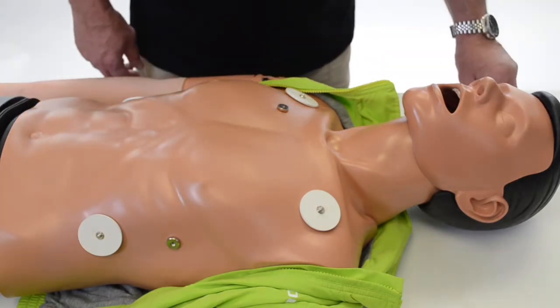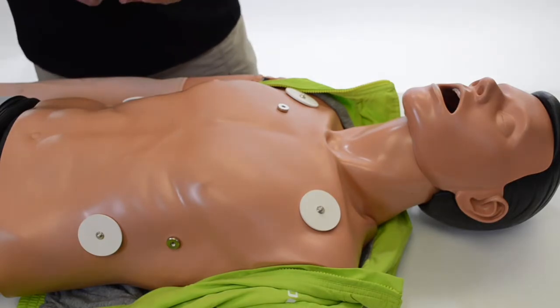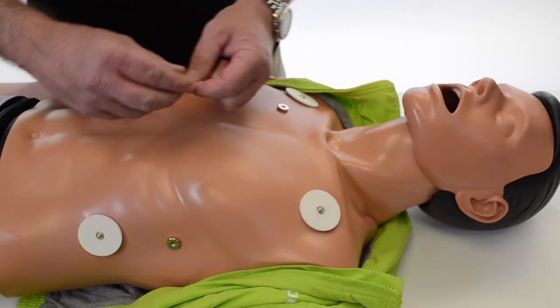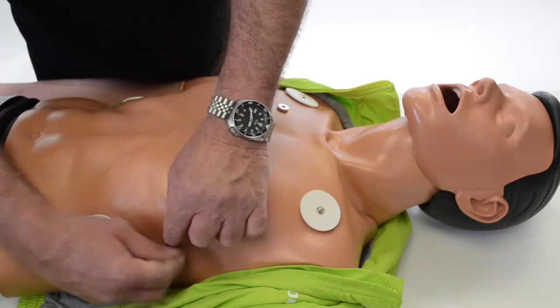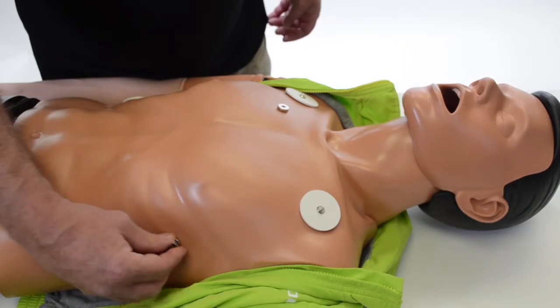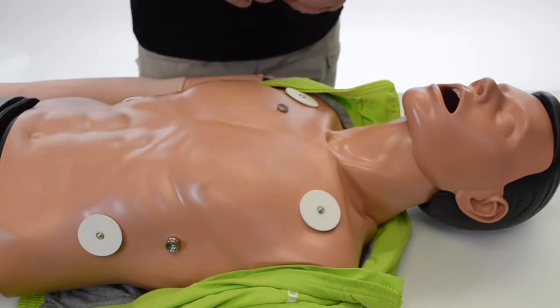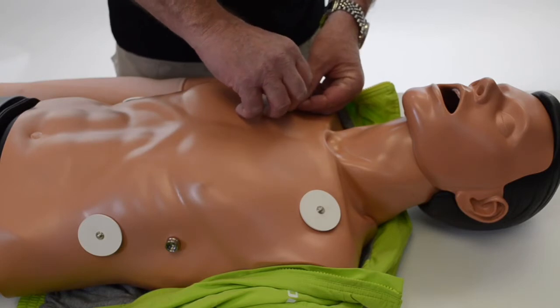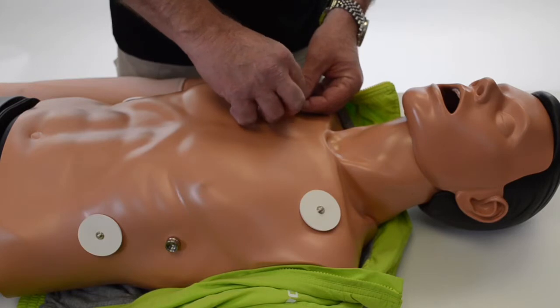So if you want to discharge live energy, what we have to do is take and install adapters onto the posts. These particular adapters that I'm installing are for a LifePak — they screw into the post. This allows you to hook up training cables, so you can discharge up to 360 joules of energy to the mannequin without harming it.